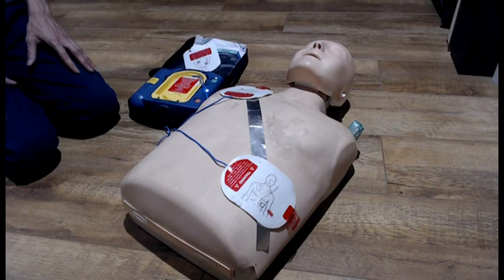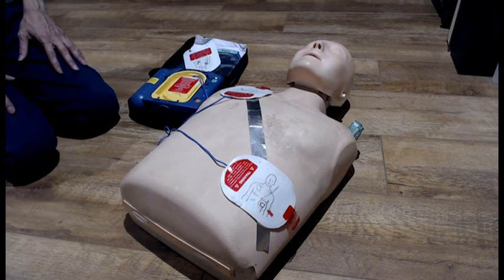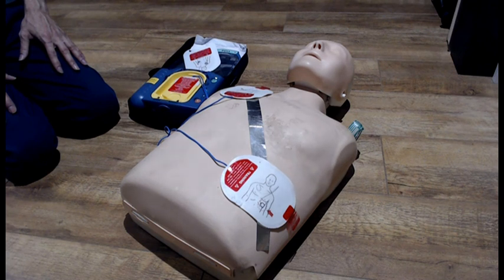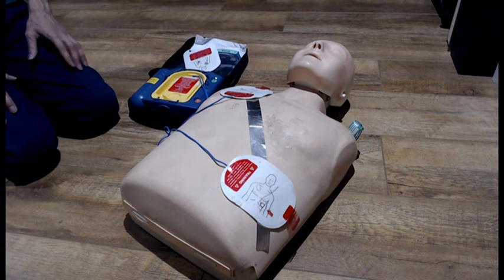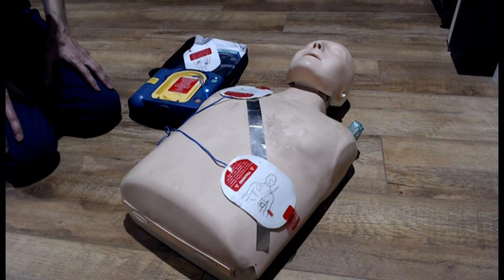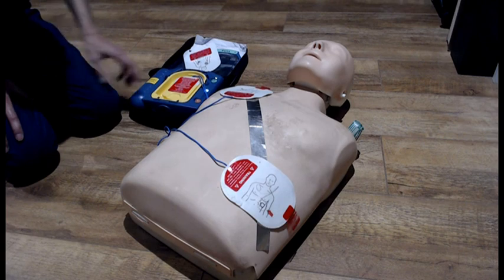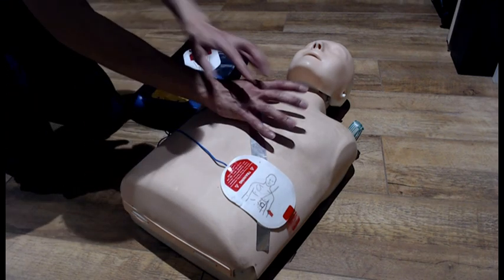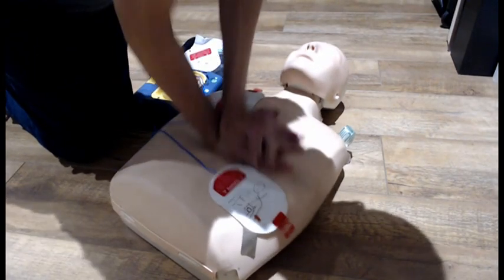Stop CPR. No one should touch the patient. Analyze it. Shock not advised. It is safe to touch the patient. If needed, start CPR. For help with CPR, press the flashing blue button. Push the chest down firmly 5 centimeters.